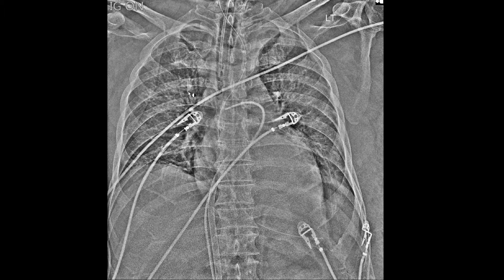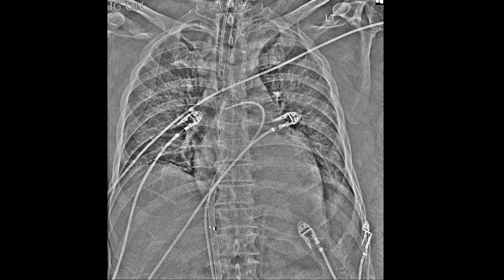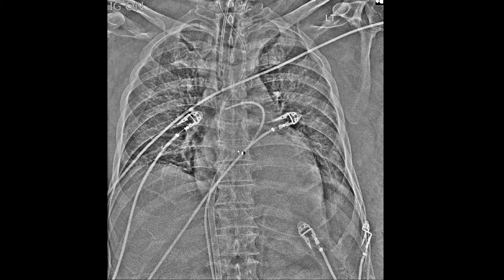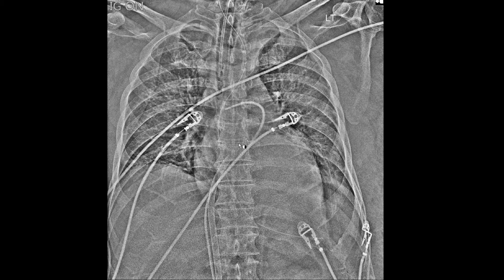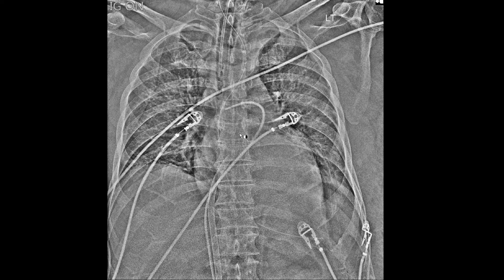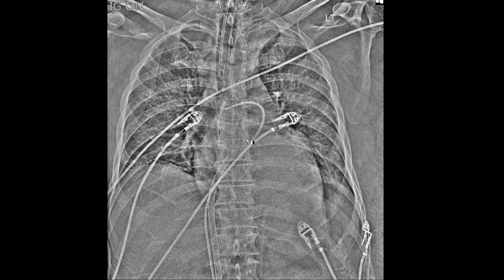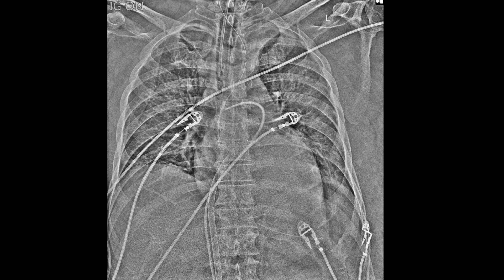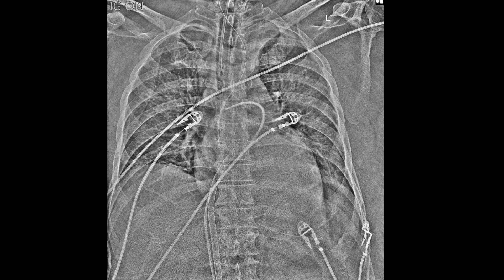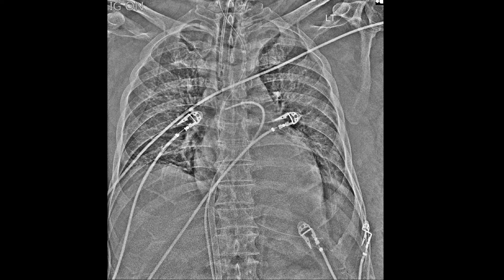Moving to other temporary ventricular assist devices, the TandemHeart device enters from the IVC and crosses the atrial septum — it is trans-atrial septal — and is then positioned in the left atrium. The inflow portion is in the left atrium, and the outflow is in the femoral artery distally.